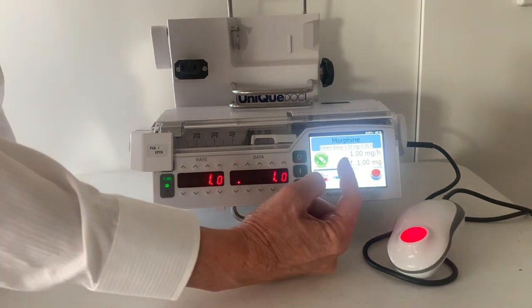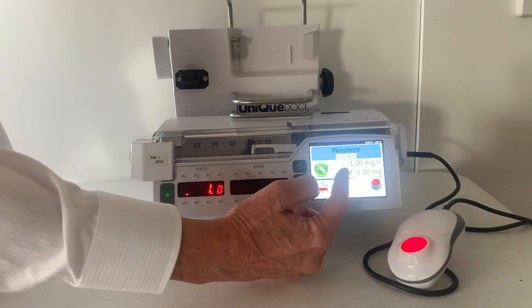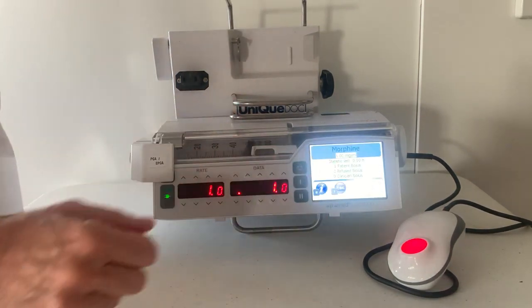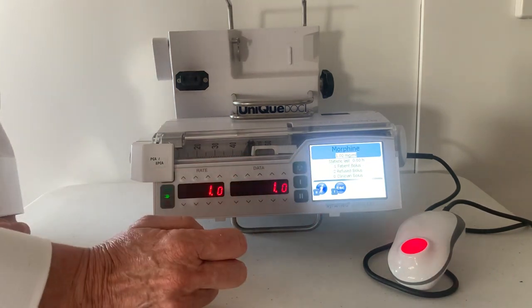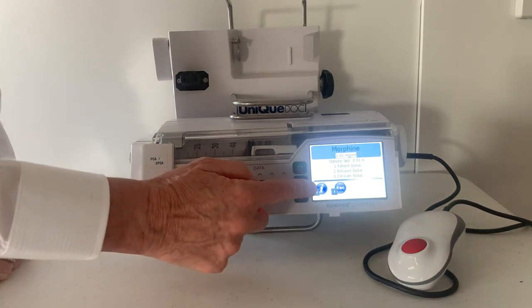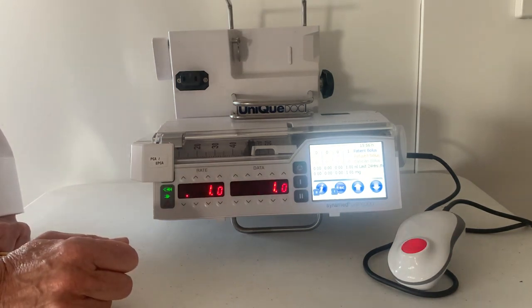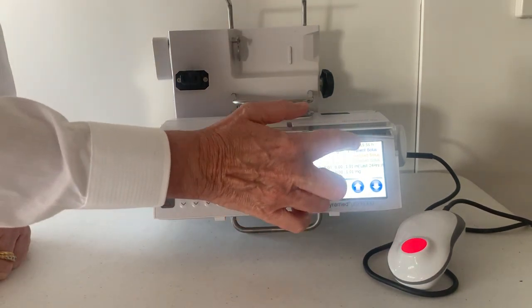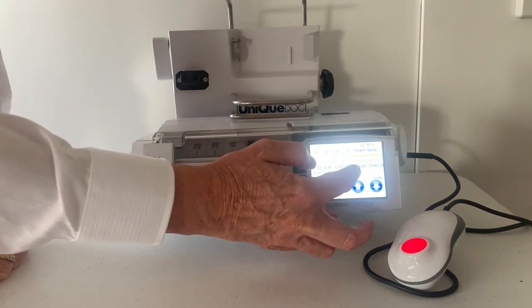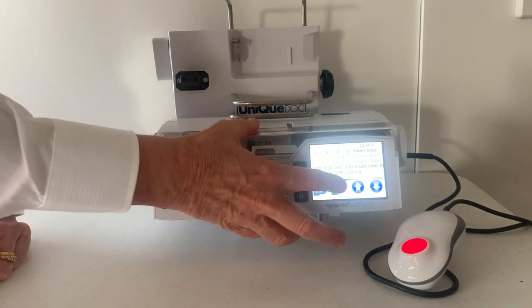To access reports, some reports are on the home screen — you can see that one milligram has been infused. To access the PCA reports, press the green drop syringe and it tells you how many successful patient boluses and how many refused boluses. For more information, press I. This will give you a breakdown of an hourly summary of the PCA ops, as well as the amount infused in that hour in mils and in milligrams. To return to the home screen, press escape.